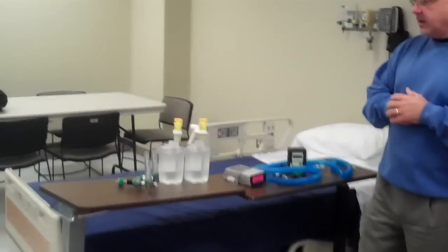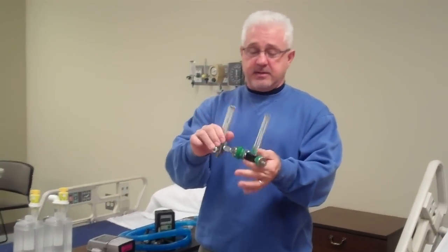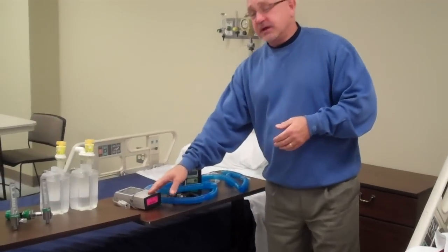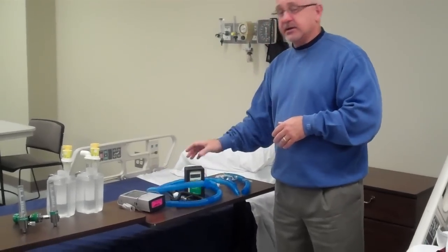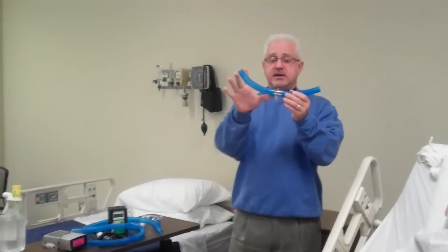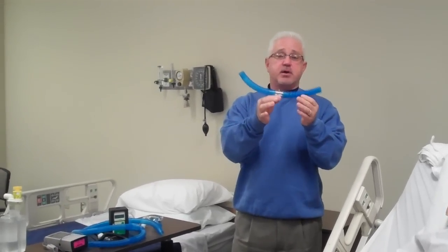After I've gathered all that together, I would gather my equipment: two large volume aerosol nebulizers, two flow meters with a Y connector — connecting both flow meters to the quick connect Y in the wall. I needed a pulse oximeter, corrugated tubing, a trach collar mask, a water trap, and an O2 analyzer. I'd also need two lengths of corrugated tubing — each 50 cc's — and a T-bar, because I'm going to connect both large volume nebulizers together.